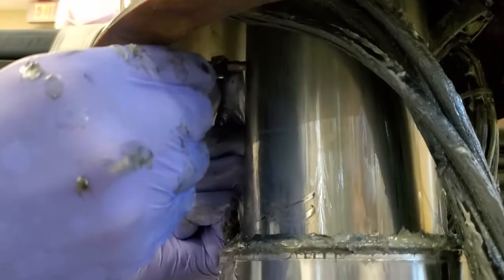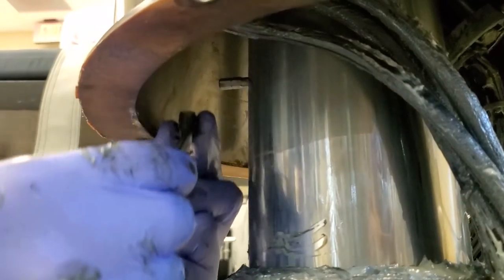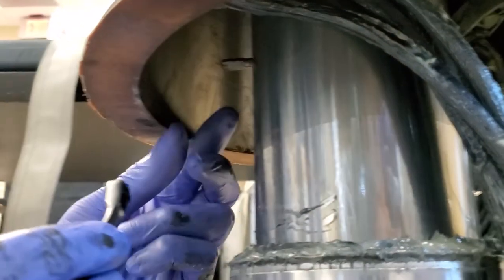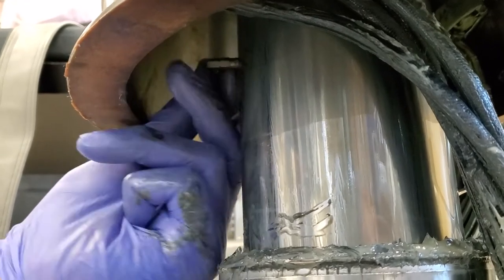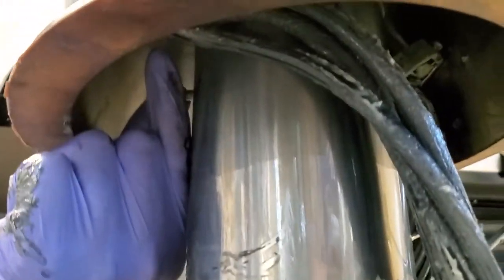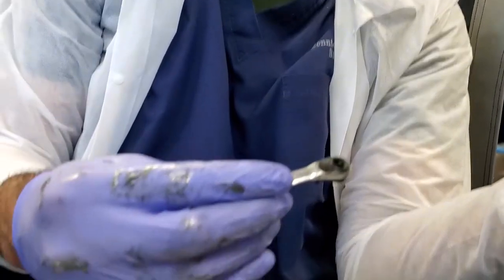You see, we're using a micro ratchet and a regular six-sided bit with the number six or six millimeter. This table here doesn't go up pretty high, so you've got to get up in there. And for that one, this little ratchet works a treat.